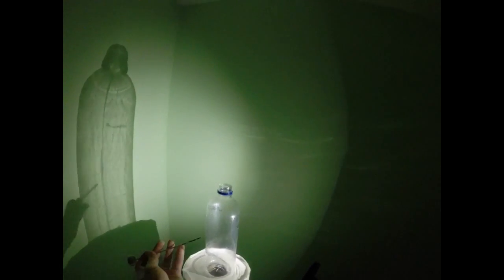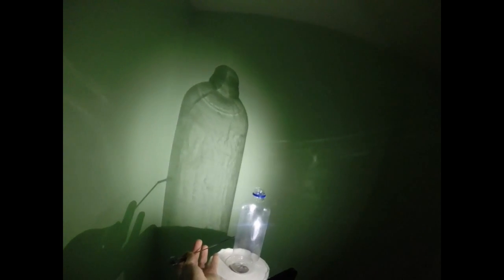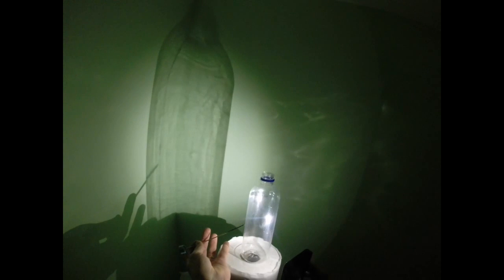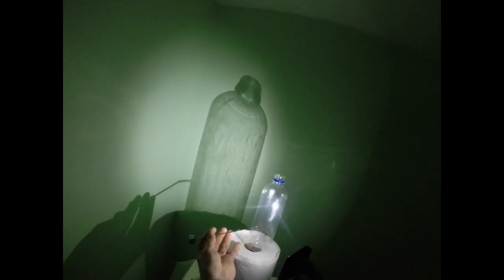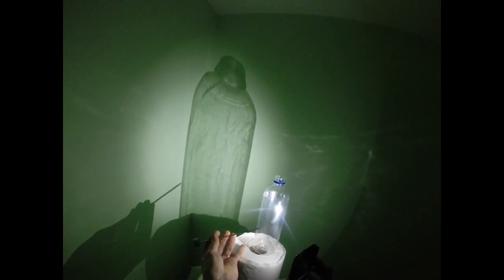With my needle approaching the midline and positioning the light source in the lateral view, I can see the needle tip touching the middle line — the edge of the shadow. When I go for a contralateral oblique view, I can see my needle deep inside the shadow. With situation number two, when my needle tip is away from the midline in lateral view, I can see my needle deep inside the shadow. With contralateral oblique, on the other hand, I can see my needle tip touching the edge of the shadow.